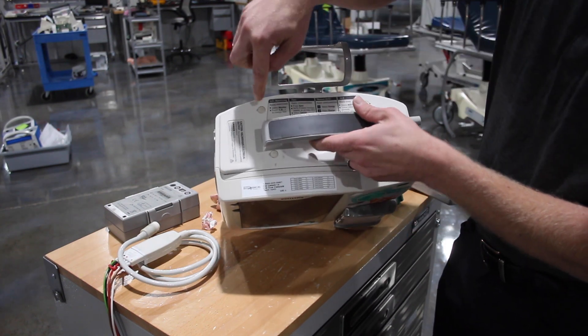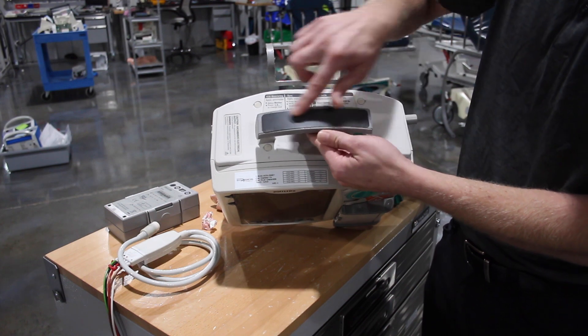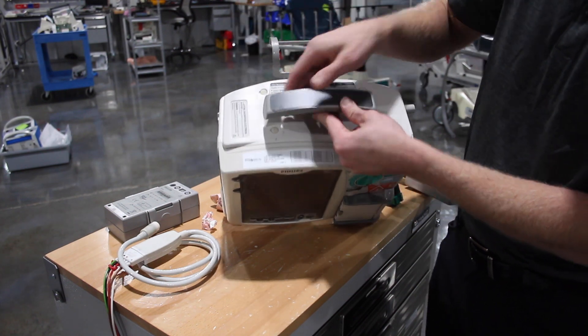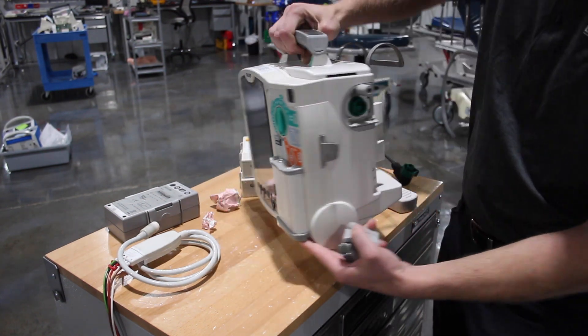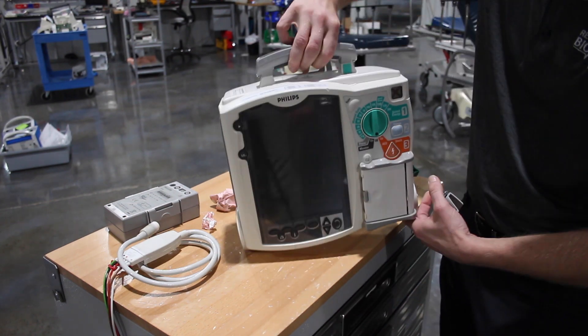We have the cap plate. They put a new one that has four anchors and two screws underneath this sticker. The old one does not have these four anchors. They've also added a collar and a cover to stabilize your therapy cable once it's plugged in.